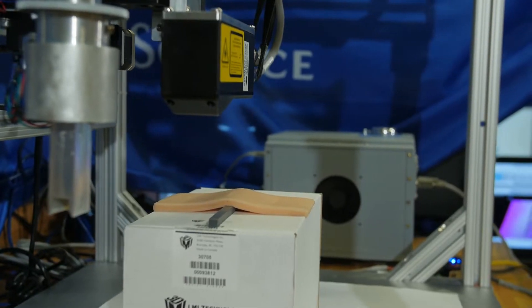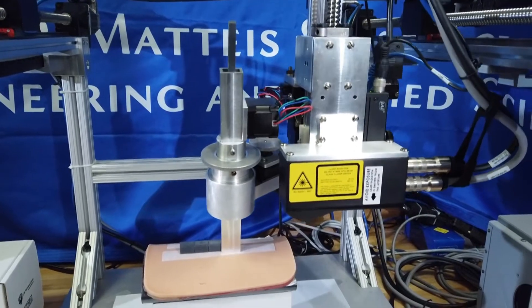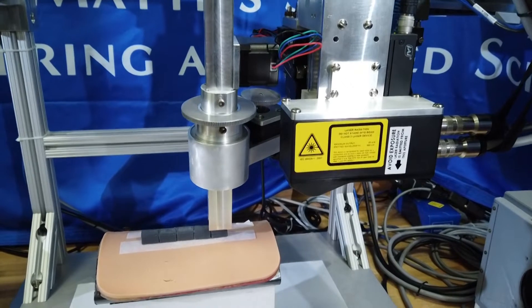We want to essentially get the surgeon out of the picture and just have the device itself have enough intelligence to be able to do the procedure.